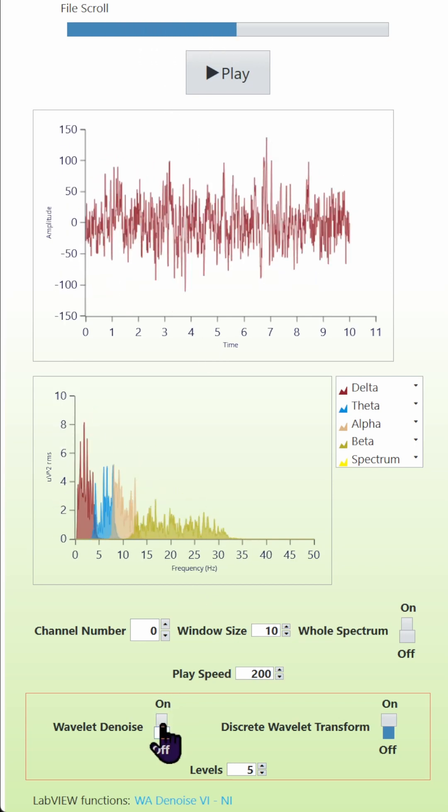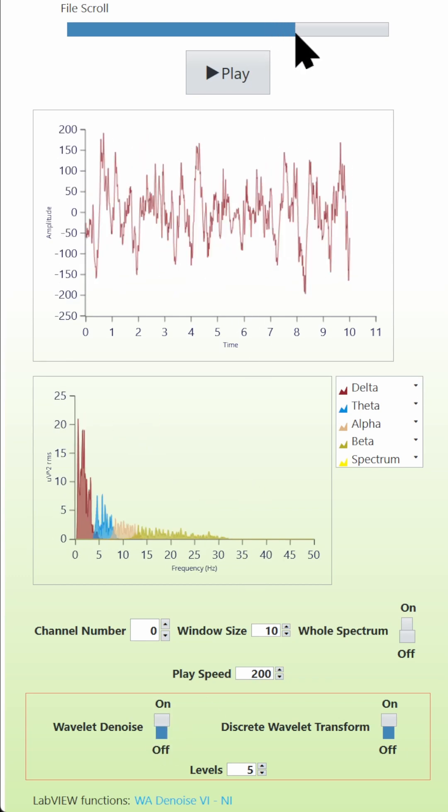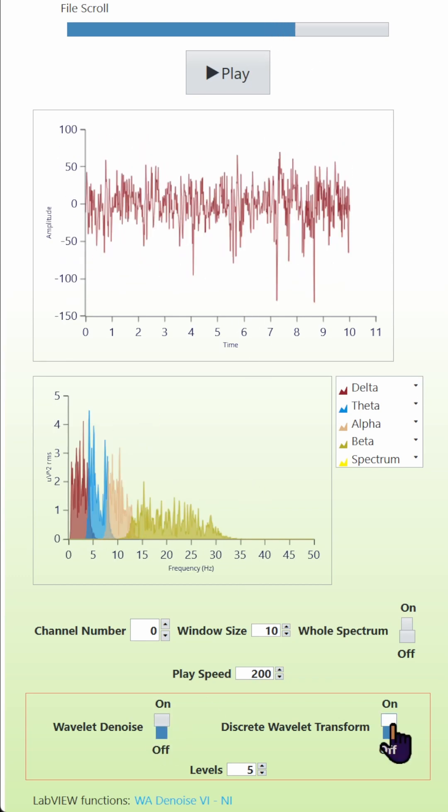In some instances it's not doing much, and in others it's very useful. You can also choose between discrete wavelet transform on and off.